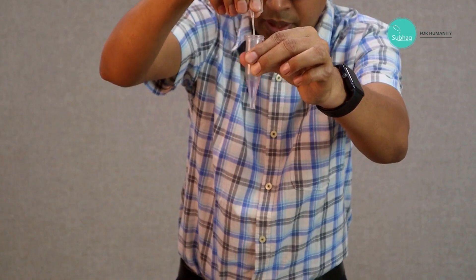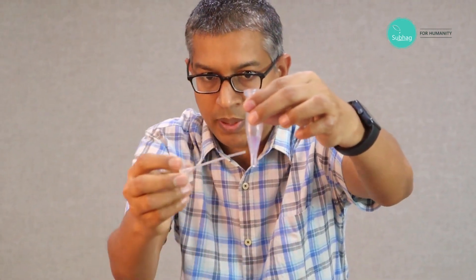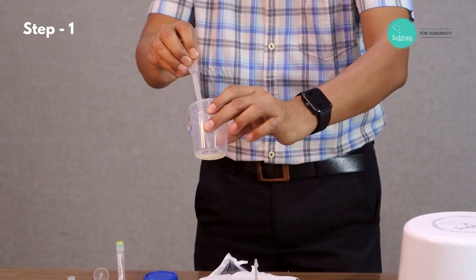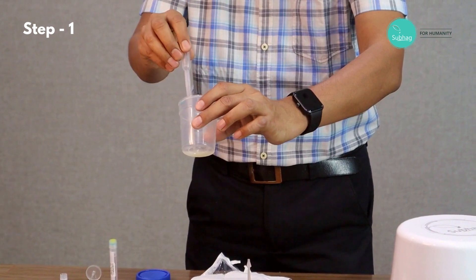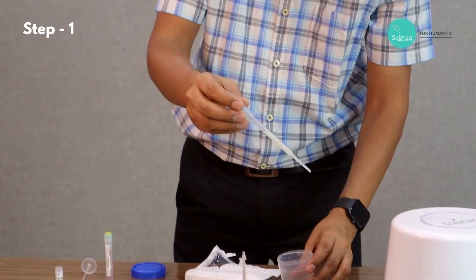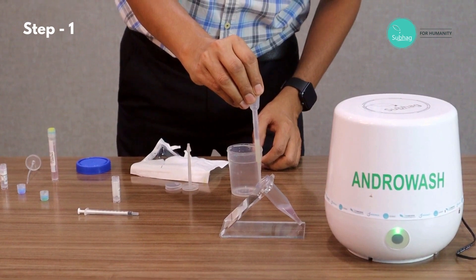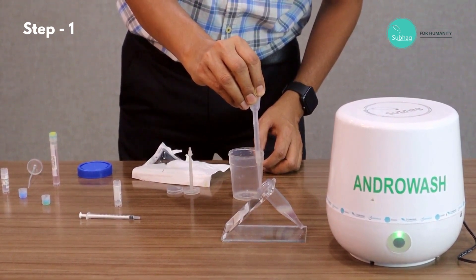As you can see, the heavy density is at the bottom and the low density is on the top. Then we take the liquefied semen with the help of the pipette — we can do pipetting once or twice as needed — and then we take the entire quantity and simply release it over the wall. We just have to take care that we are slowly releasing it over the wall, not directly on top of the layer. As you can see, the layer is getting formed.